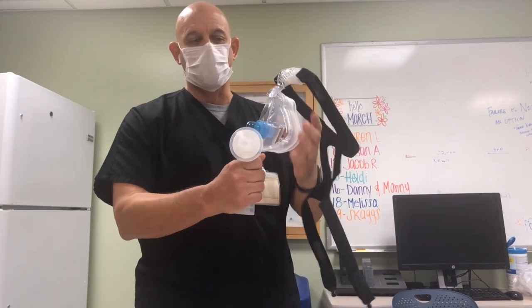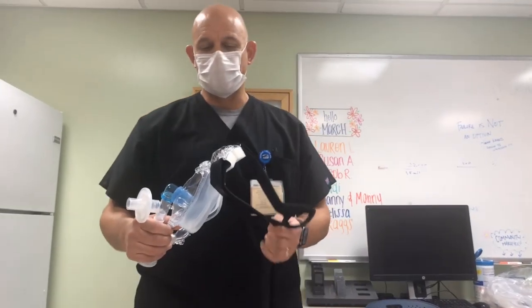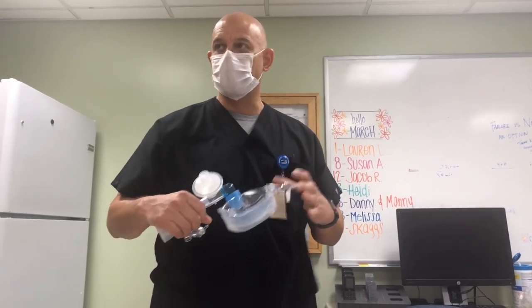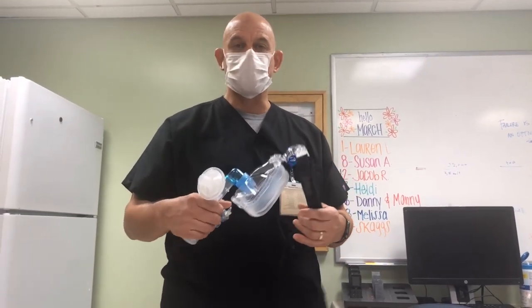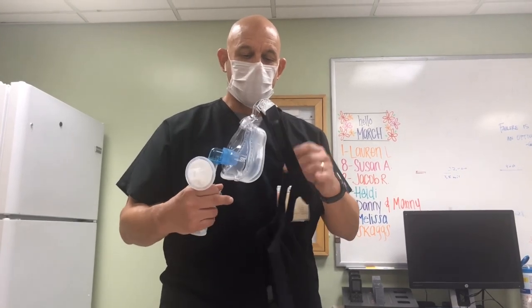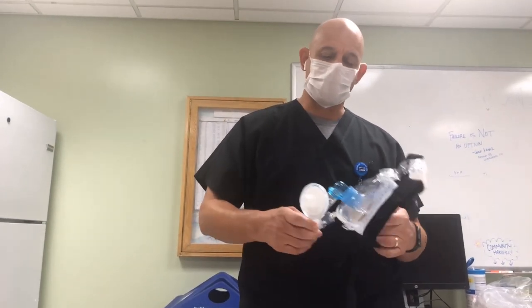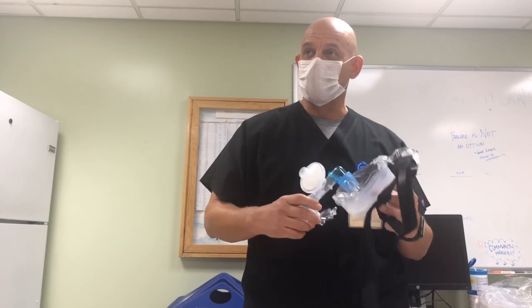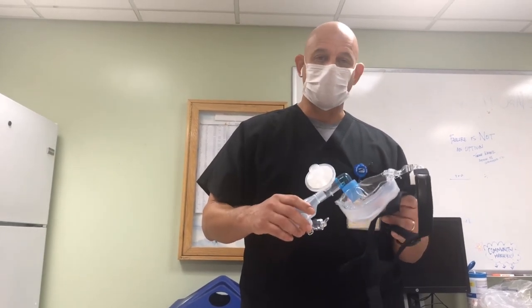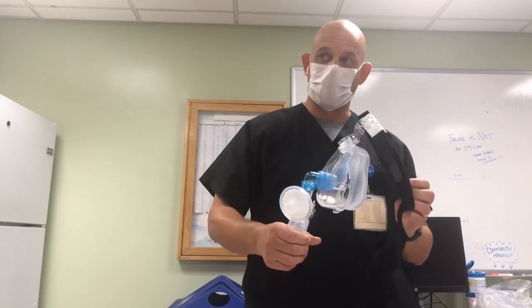It would prevent aerosol from escaping — with COVID-19, you don't want to expose people to aerosols. So the whole idea was to only give MDIs. The issue with MDIs is that if you use all of them or they're short in supply, you're going to have to come up with a different way to nebulize or give your treatments. And this was the way we came up with.